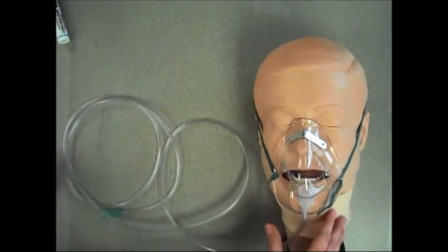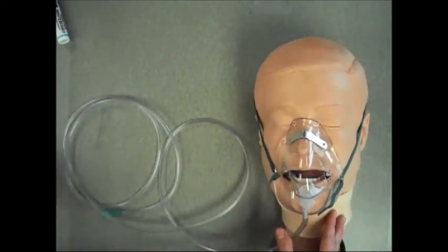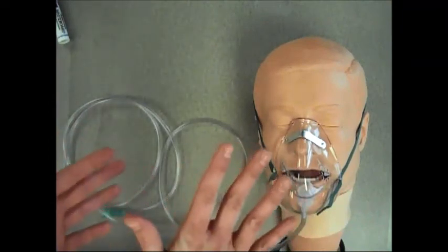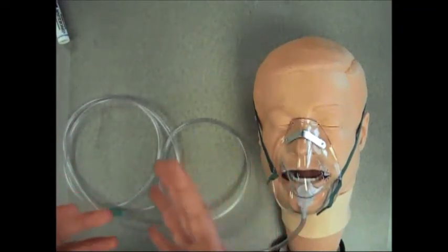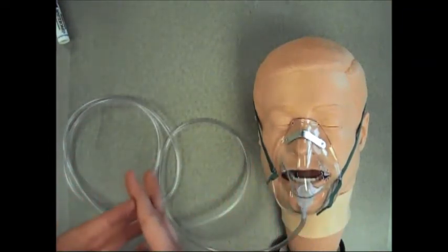The simple face mask is ideal for a patient who is in minimal respiratory distress. This type of oxygen device is often used for patients who are mouth breathers. A minimum of 5 to 10 liters should be used to flush CO2 from the mask.